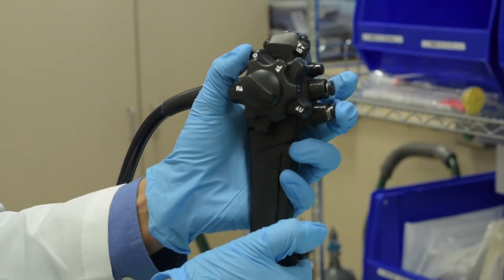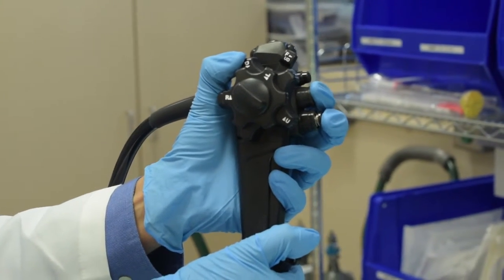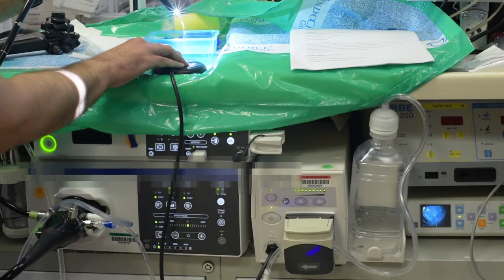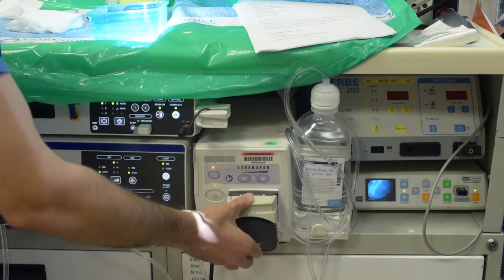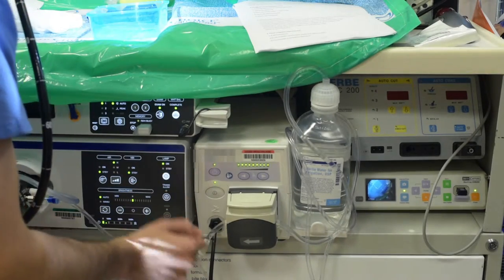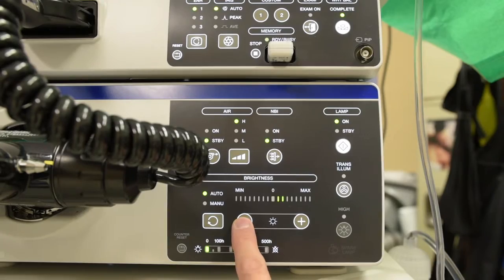We talk about the various subcomponents of the endoscope, including the water pump, the water jet channel, and troubleshooting issues that may occur. We talk about the light source and processor.